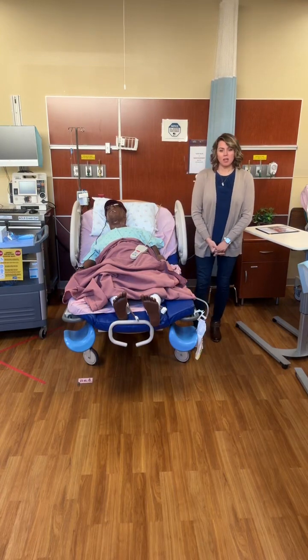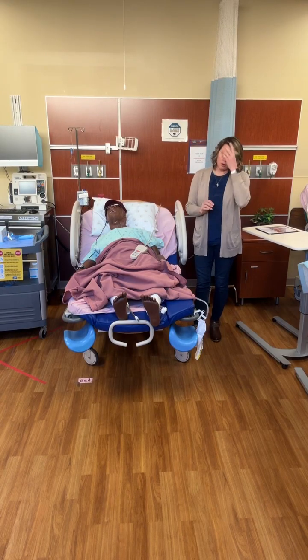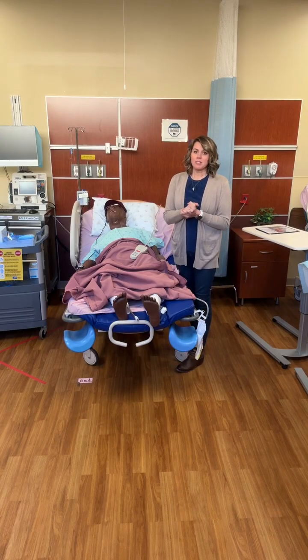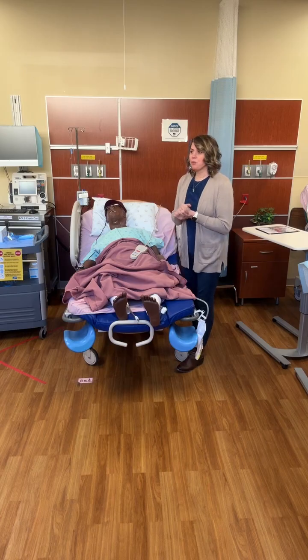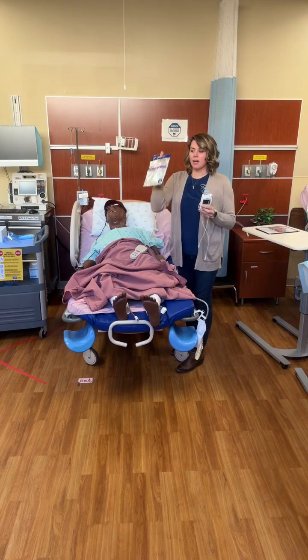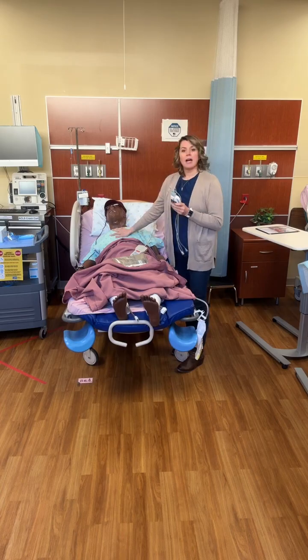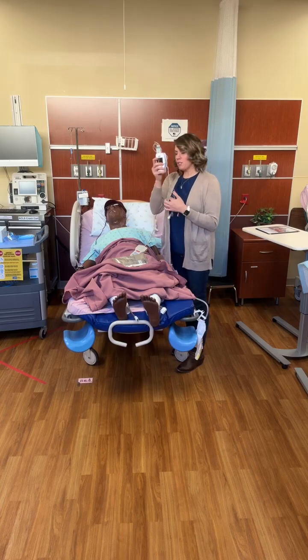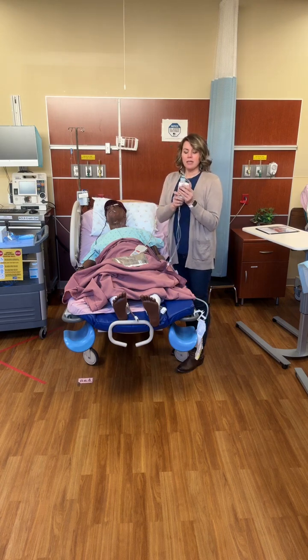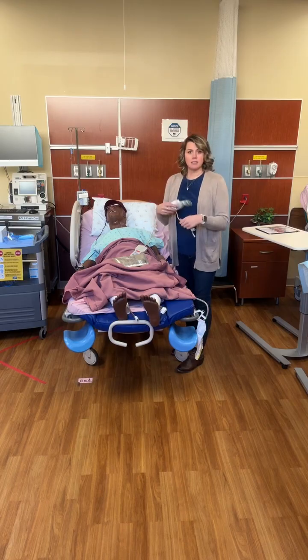Okay, so now we are going to talk about how to operate in the room during your simulation. One of the first things we're going to talk about is telemetry. If your patient requires telemetry and you need to put them on a monitor, you will connect electrodes to the telemetry and apply them to the simulator. This is usually sitting on the crash cart right there, so if you need it, that is where it will be. All right.